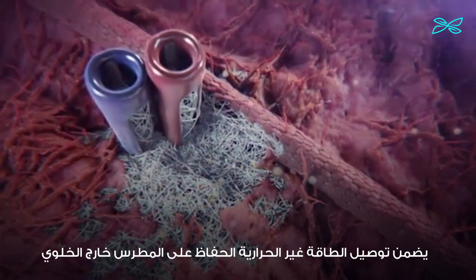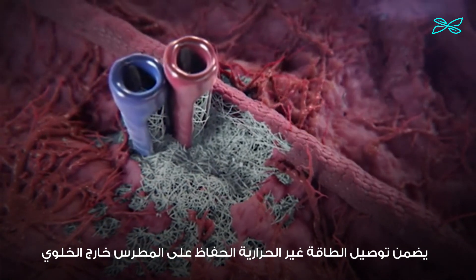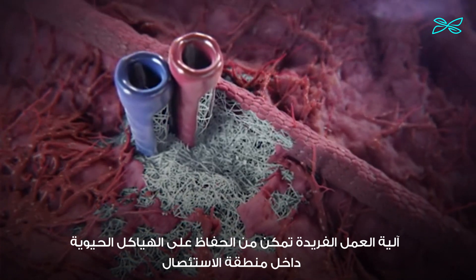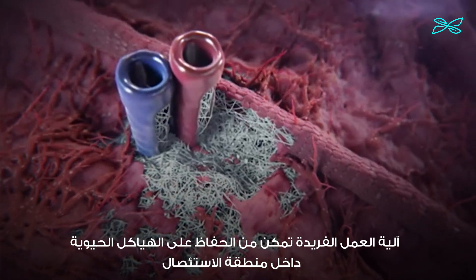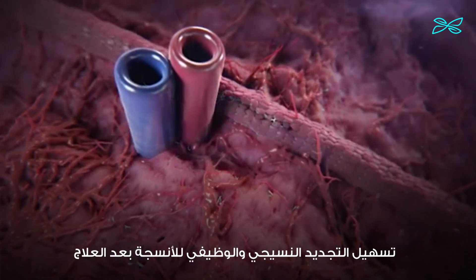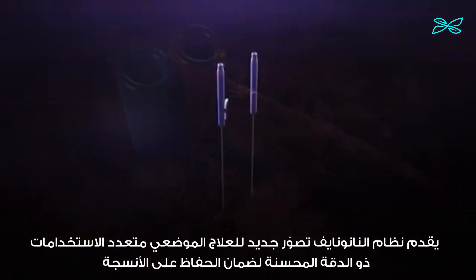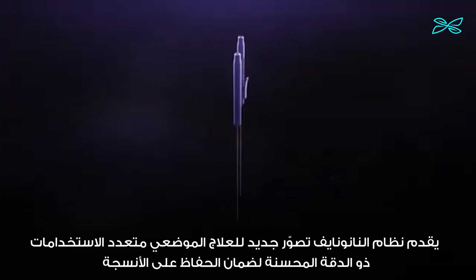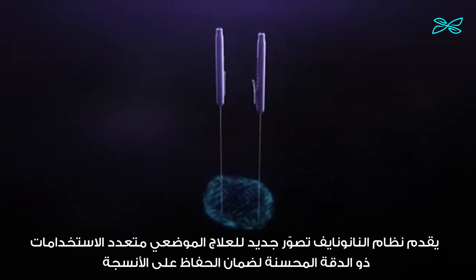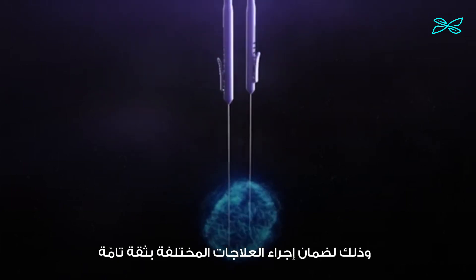Delivery of non-thermal energy ensures the conservation of the extracellular matrix. The unique mechanism of action enables the preservation of vital structures inside the ablation zone, facilitating the histological and functional regeneration of tissue following treatment. The NanoKnife system reimagines localized therapy — improving precision, increasing preservation, and expanding versatility to ensure treatments can be tailored with confidence.